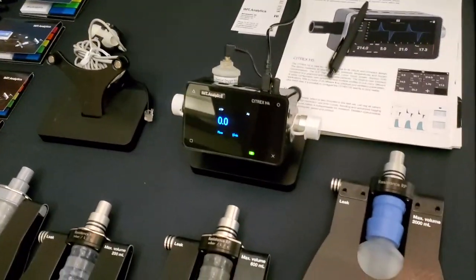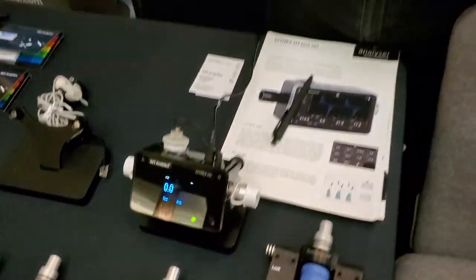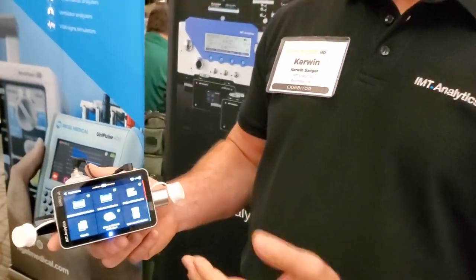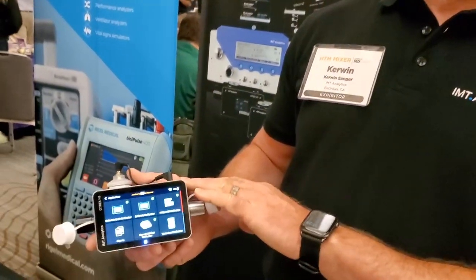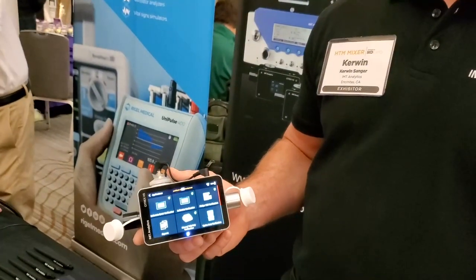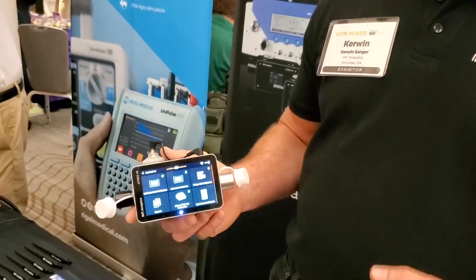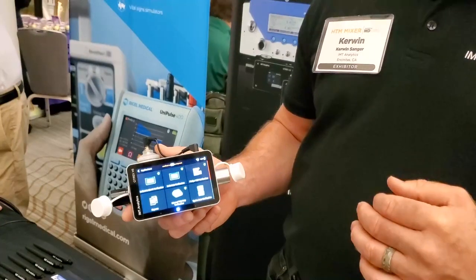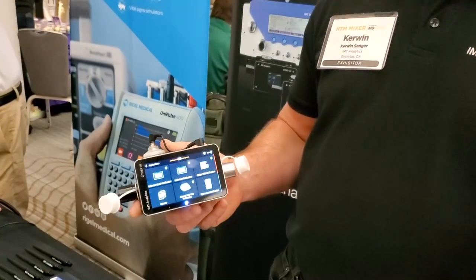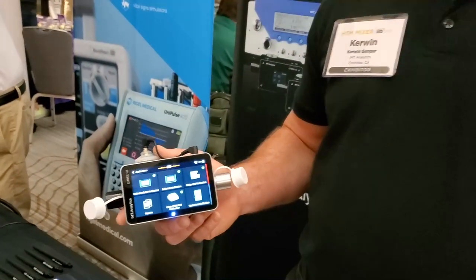We want to make sure that the data is up to date and always accurate. The way you make sure your device is up to date is just do the software update, and you can do that via USB or over Wi-Fi.